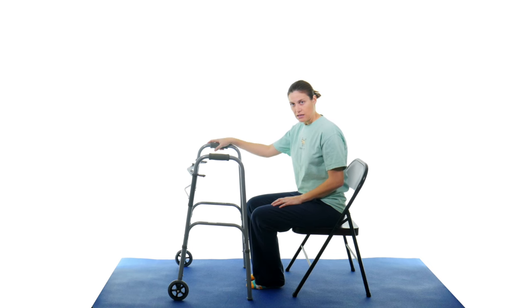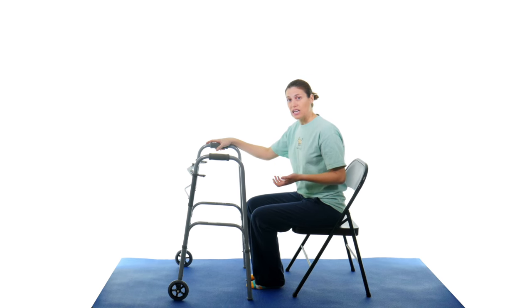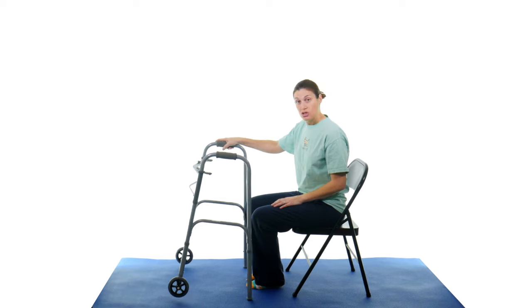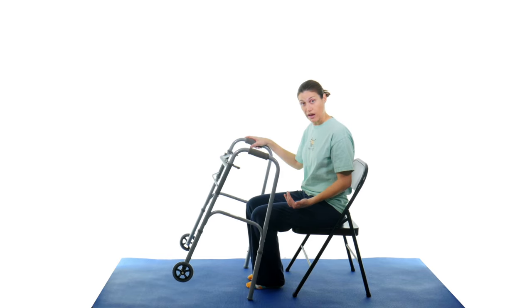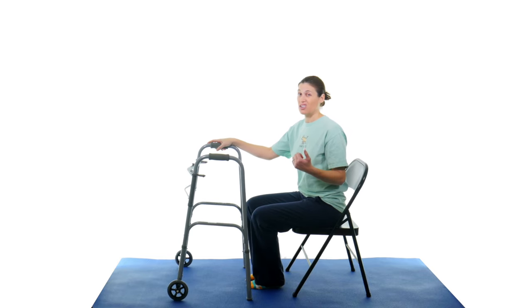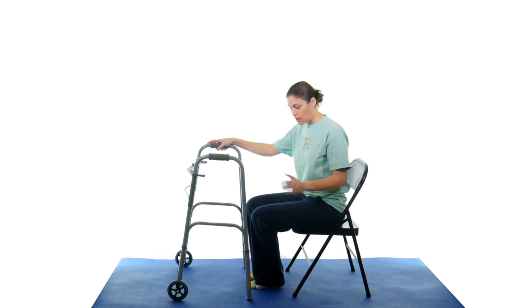you want to put one hand on the walker and it doesn't really matter which hand. If you want to use your dominant hand you can, but it's really just there for stability. You're not using it to pull because then you're going to pull that walker towards you and again either you're going to end up hurting yourself or you're just not going to be able to get up.